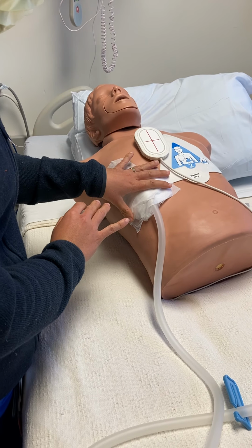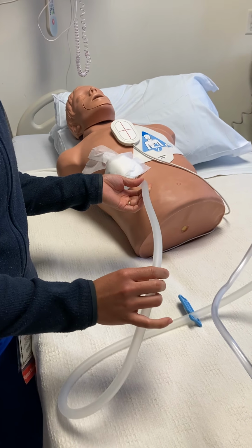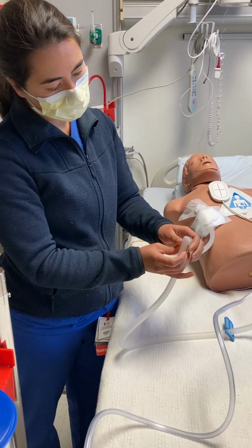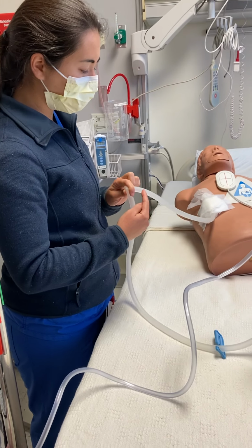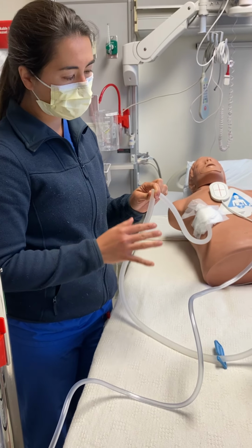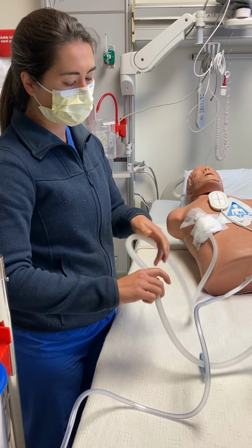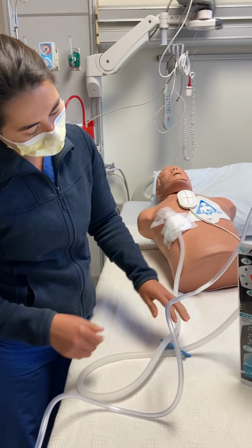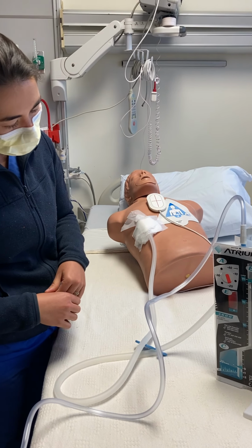If neither of those things are the issue, then you start to see, do we have an air leak along the tubing? The way you can isolate where that air leak may be is if you pinch off the tube and the air leak goes away, that means that the leak is somewhere above the point that you've pinched it. If the air leak is continuing, that means that you have some sort of issue below where you've pinched it, and you just work your way down and figure out how to isolate that too. So that would be where we're looking for air leaks.